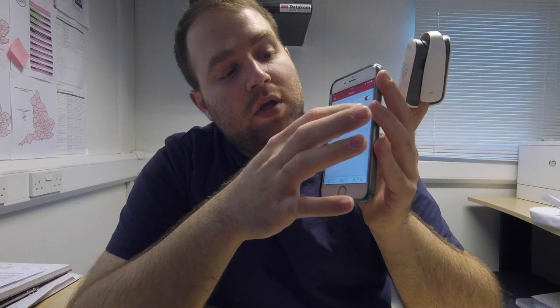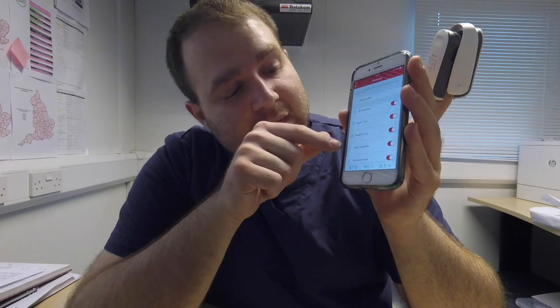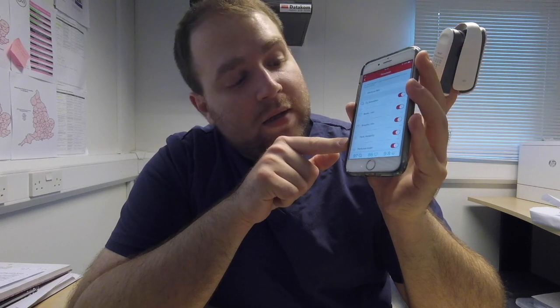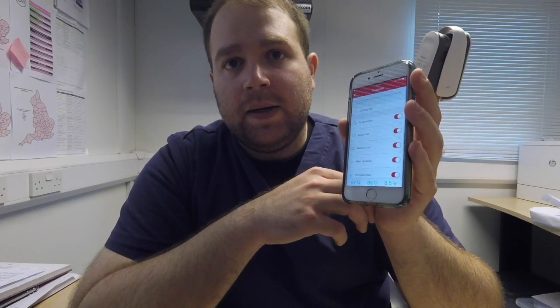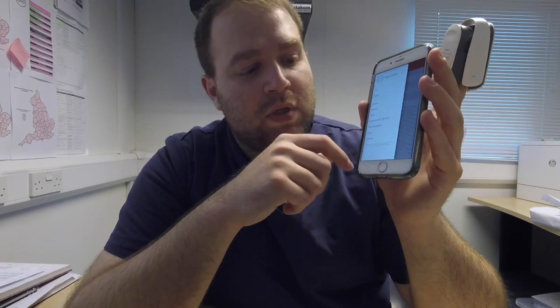You can turn on and off the sound and the alarm sounds. You can set the alarms — it has pulse rate, respiration rate, and pleth variability index alarm options. Obviously I can't demonstrate those with this device since this is the middle version without those features, but if you get the full optional version you can set thresholds for those parameters too.